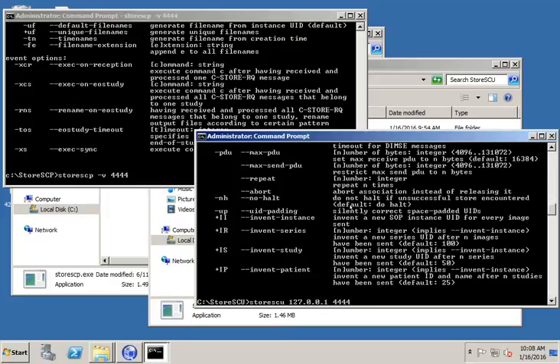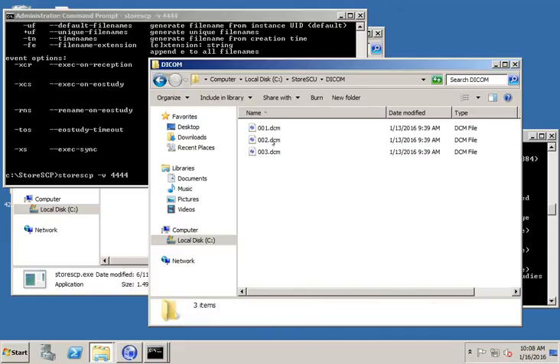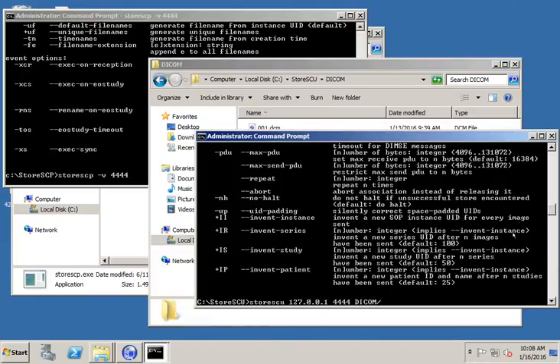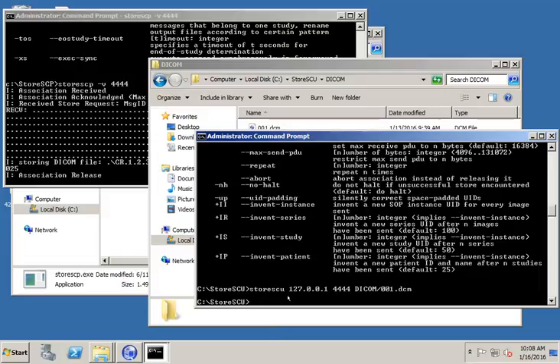So port 4444, and then I pass it the file name. So inside this directory, I know I've got a folder called DICOM. And inside that DICOM folder, I've got three images. I'm going to send file 001.dcm. So we're going to do 001.dcm. Now, when I hit enter, it should attempt to send. We saw two things. Number one, the window on the right-hand side showed that it sent, we didn't really see any feedback, but hopefully it sent the file.